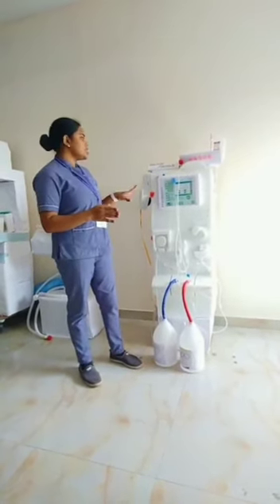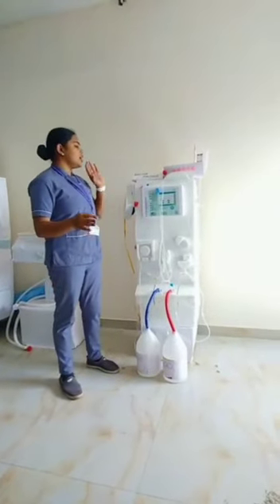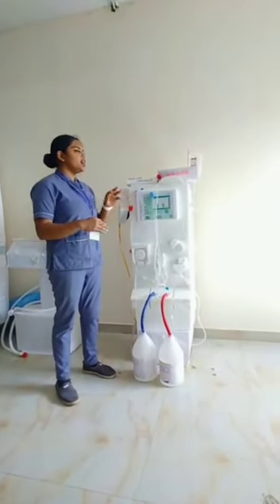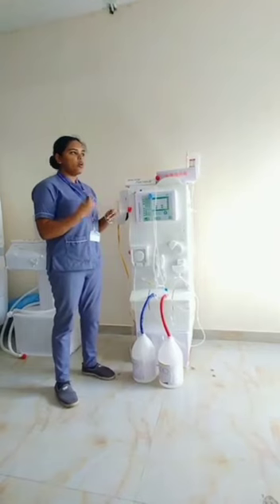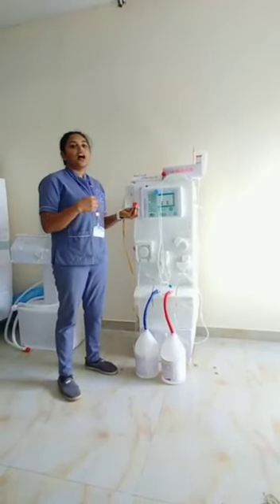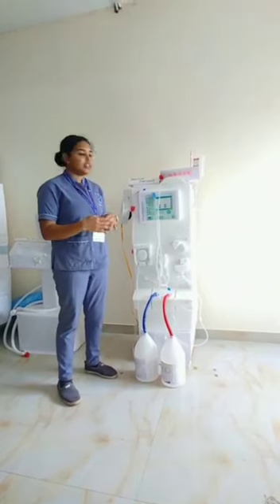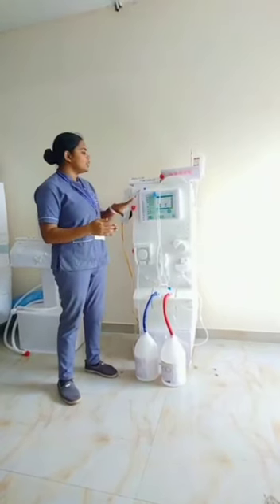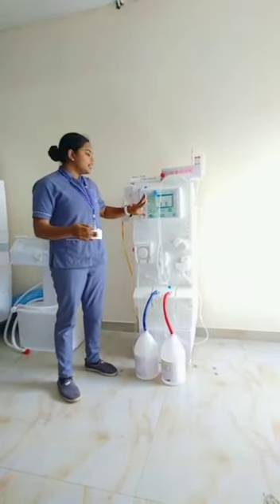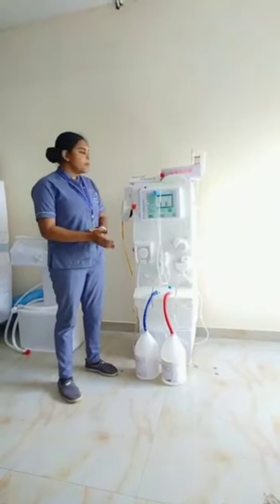This is the hemodialysis machine. Here we can see the monitor which will monitor all the pressures — arterial pressure, arterial blood pressure, and venous blood pressure — as well as temperature. All of that is monitored on the monitor that is integrated into the machine itself.